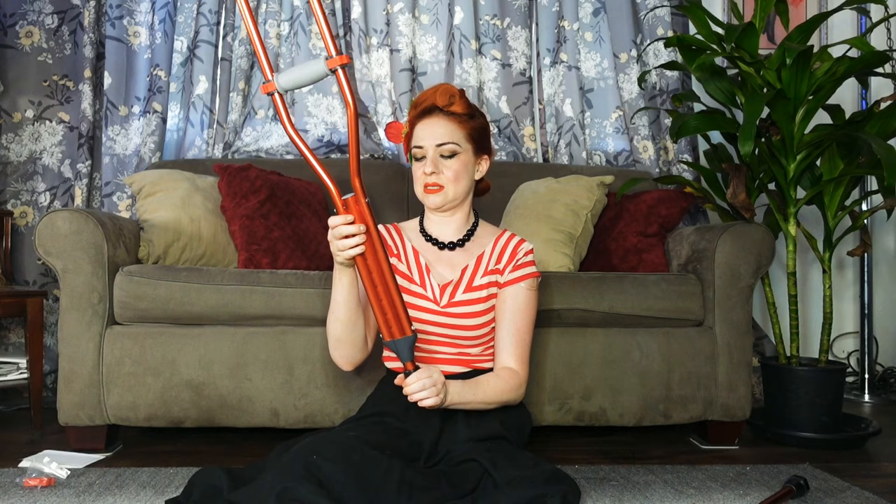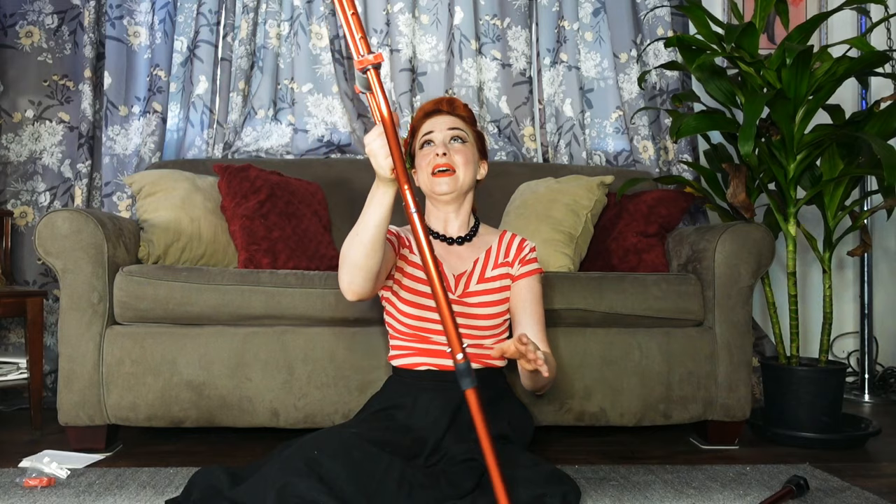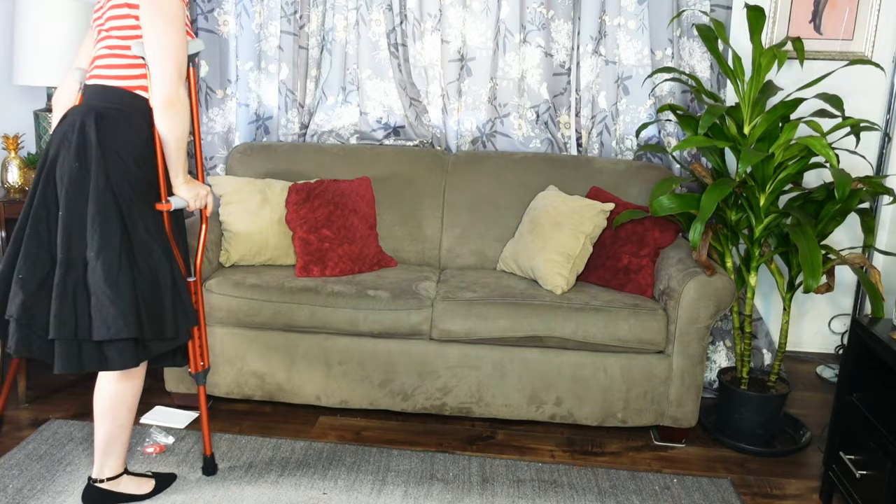Okay, get all that packaging out of here. So obviously these are too short right now, so let's see. Looks like they're still too short — I don't know if I want my handle this way, let me see. I hope I picked the right size. These are really short. I'm going to switch the cameras around a little bit so we can figure this out together.